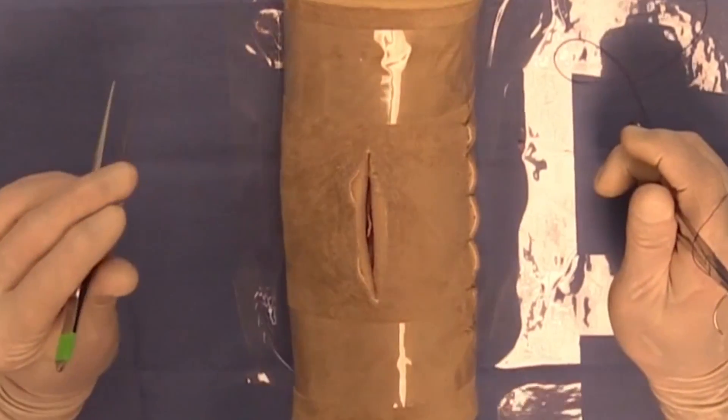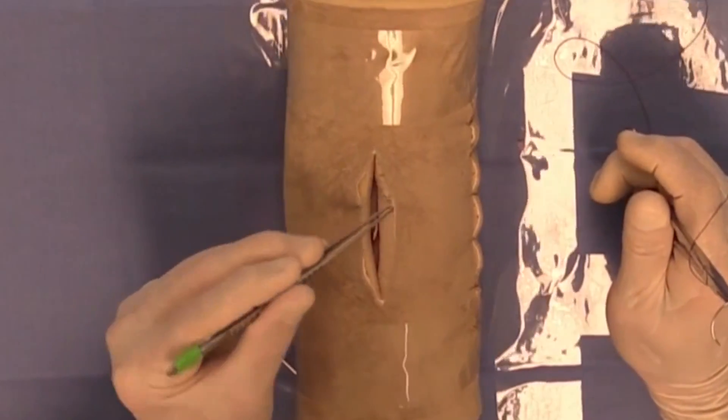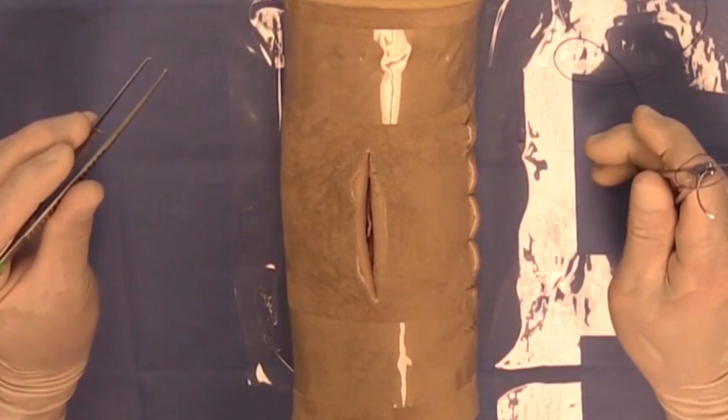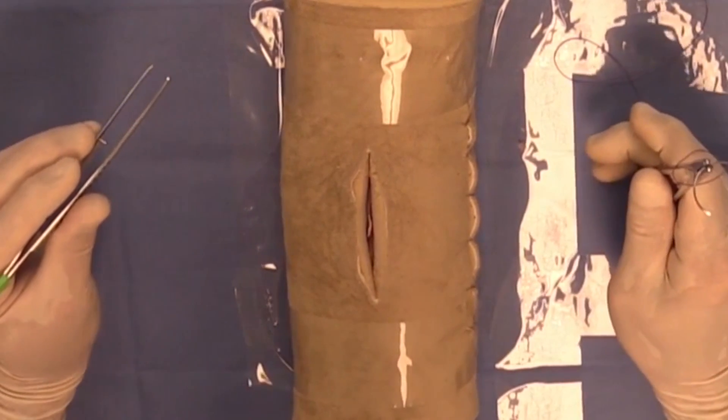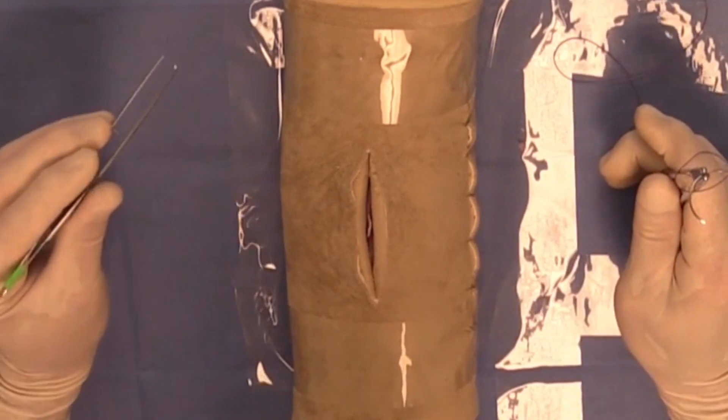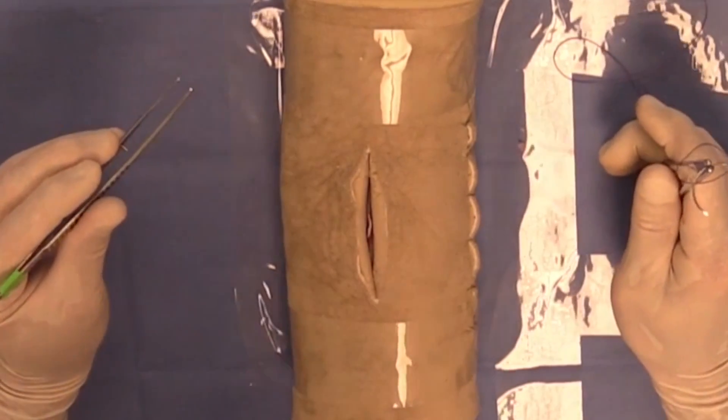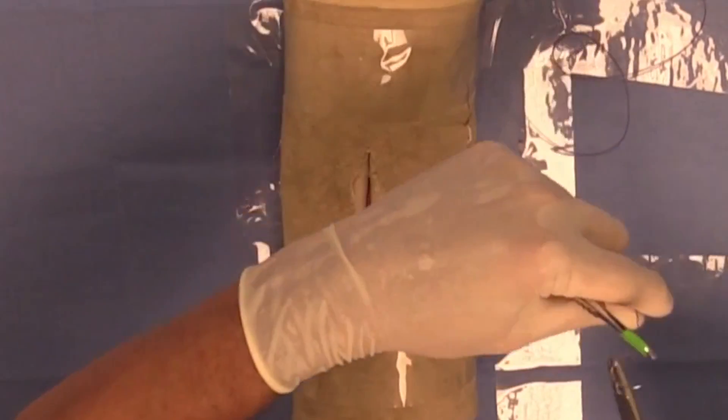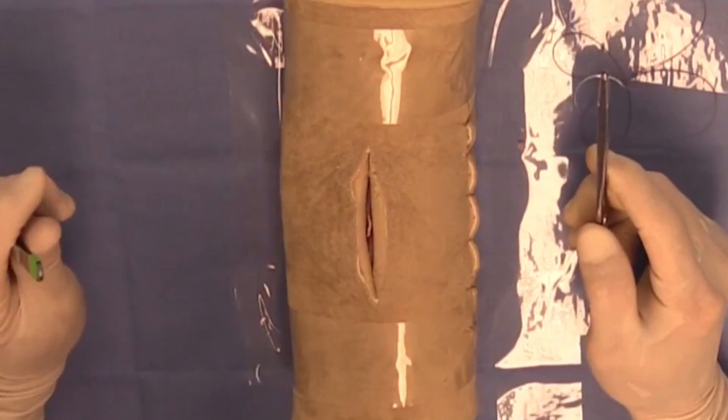In this course it's much easier because of the construction of the DAISY to perform the subcutaneous suture pattern. Frankly, the subcutaneous suture pattern is by far the most common suture pattern of the two that you would use. For this course I'd like to have you learn the subcutaneous suture pattern.